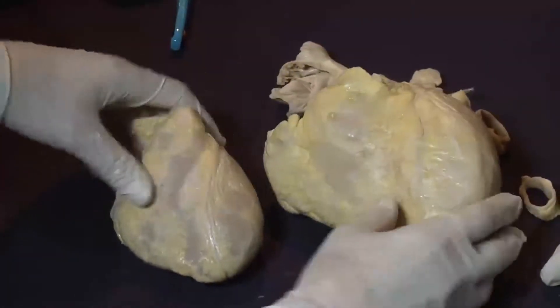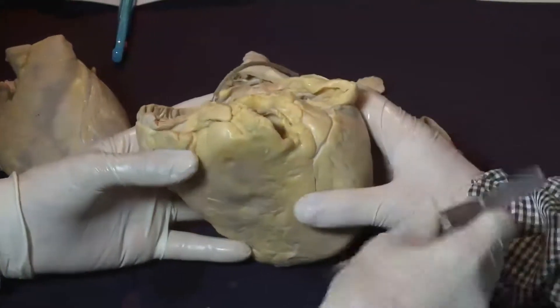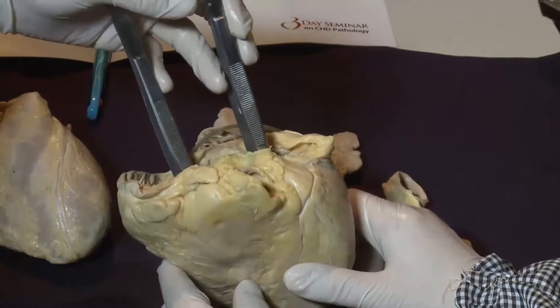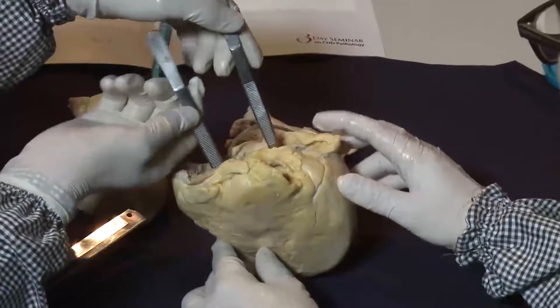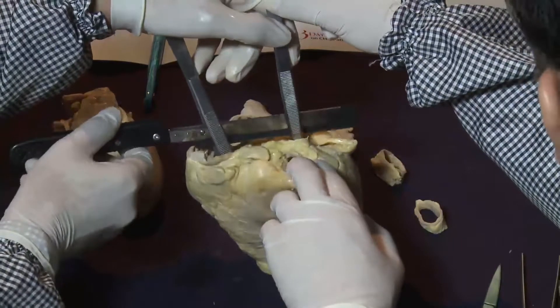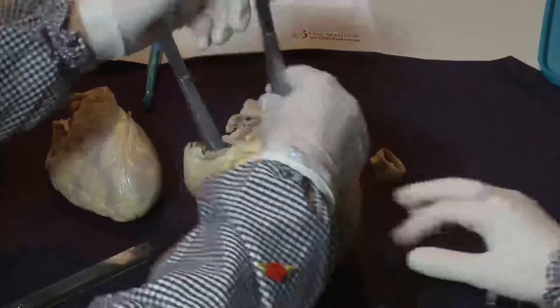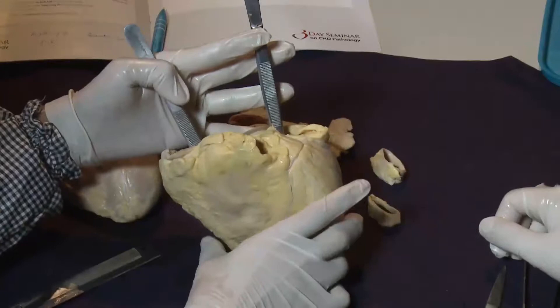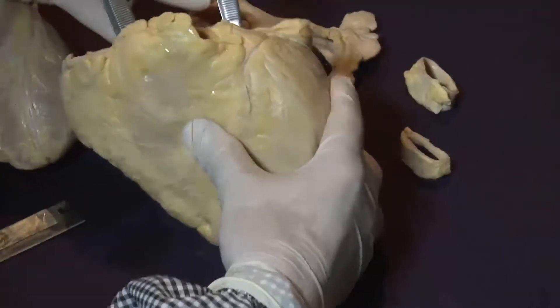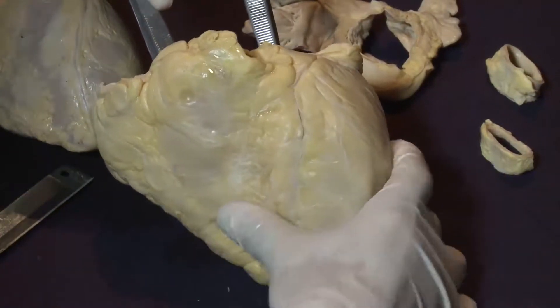There are two general principle ways to cut the heart specimen. If you want to make left and right comparative images of the wall thickness, we can make a section so that right ventricular inflow and left ventricular inflow together can be cut to easily compare these two chambers in one plane. The disadvantage is that we can miss many minor regions. So I would recommend cutting the short axis section — serial short axis sections — for this specimen.